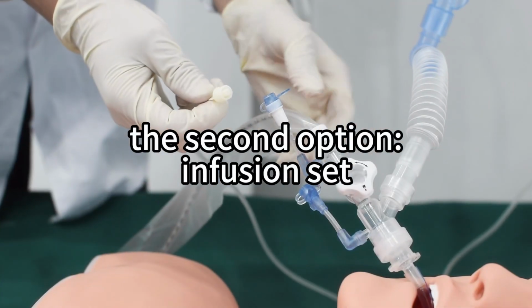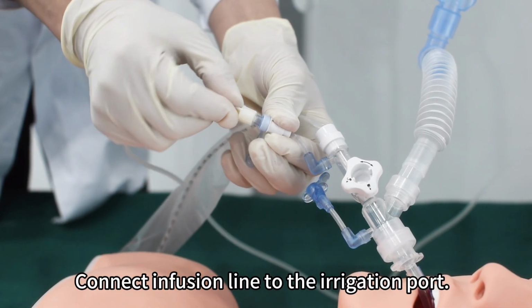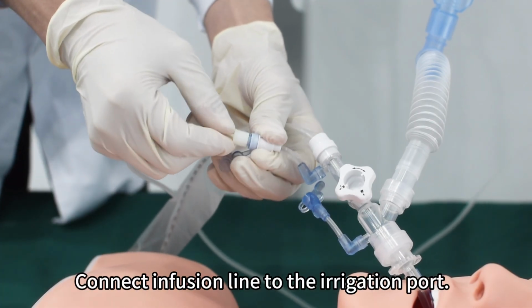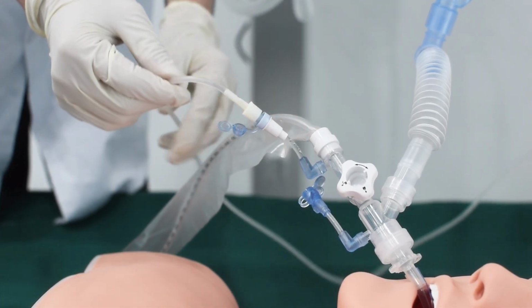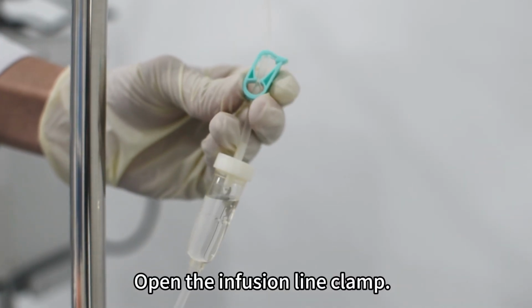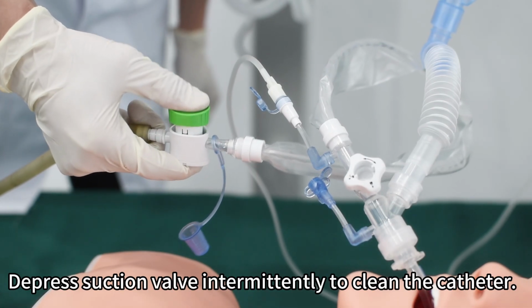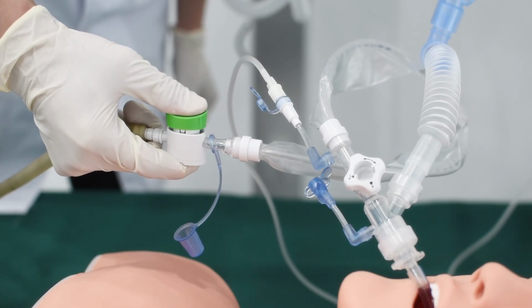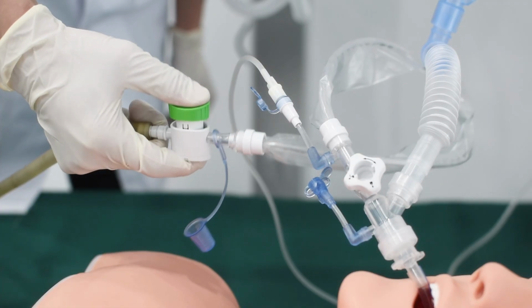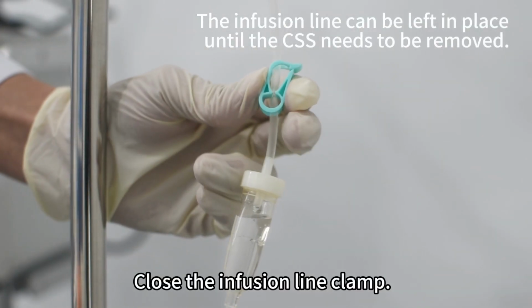The second option, infusion set. Open the cap on the irrigation port. Connect the infusion line to the irrigation port. Open the infusion line clamp. Depress the suction valve intermittently to clean the catheter. Close the infusion line clamp.